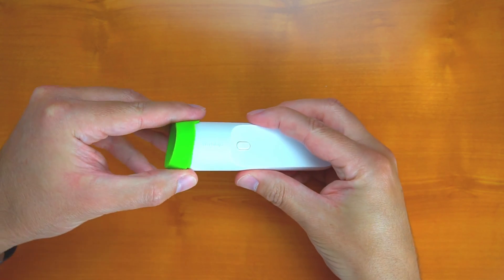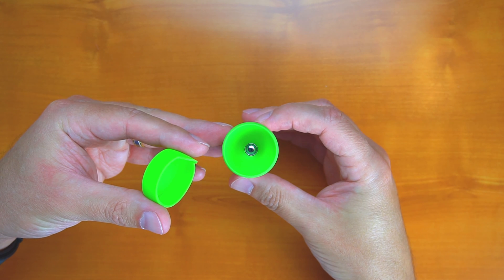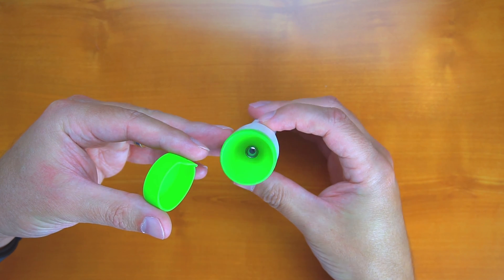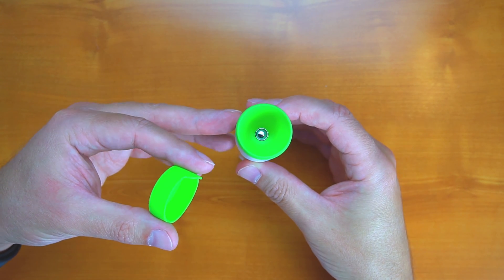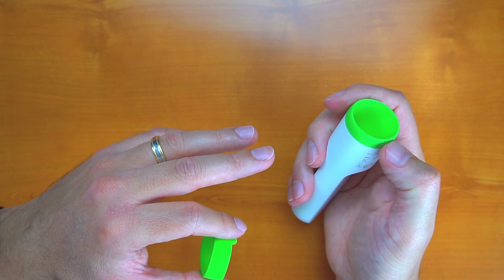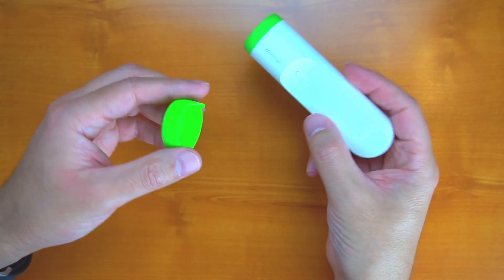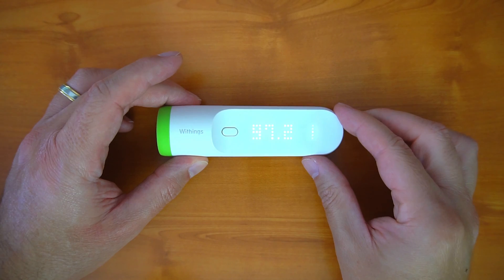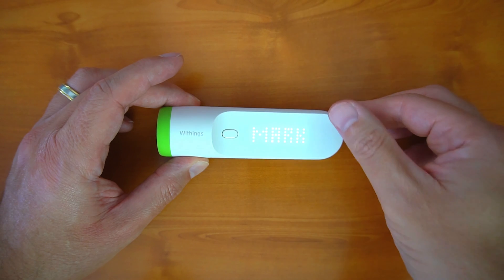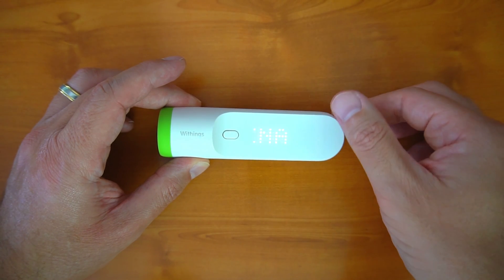This allows you to view your various biometrics, both past and present, via the web, your tablet, or your smartphone. The Thermo has a very modern and clean industrial design and uses 16 infrared sensors to gather 4,000 measurements in two seconds. To take a temperature, you press the button and then slide it across your temporal artery.